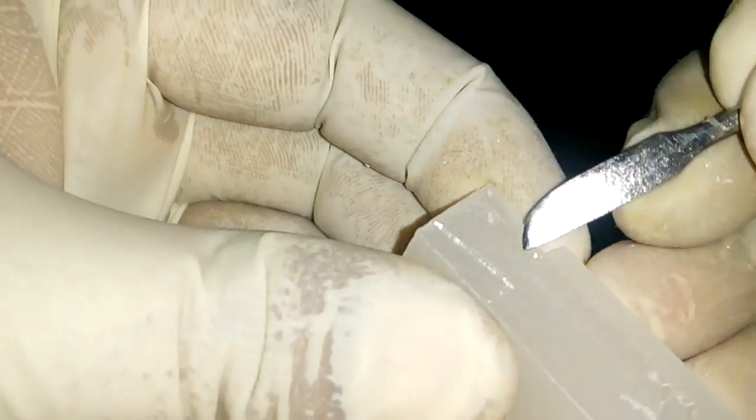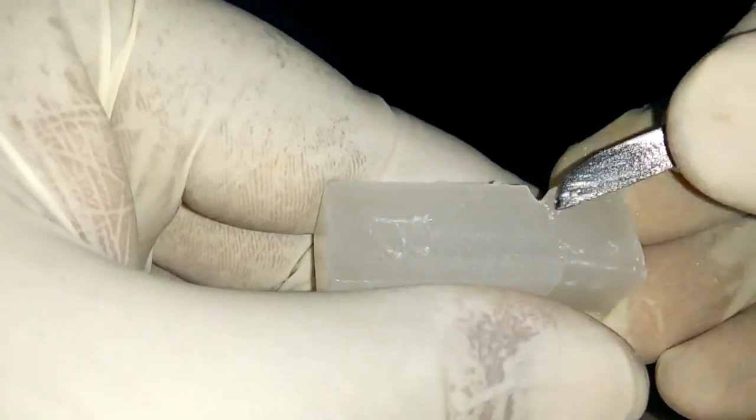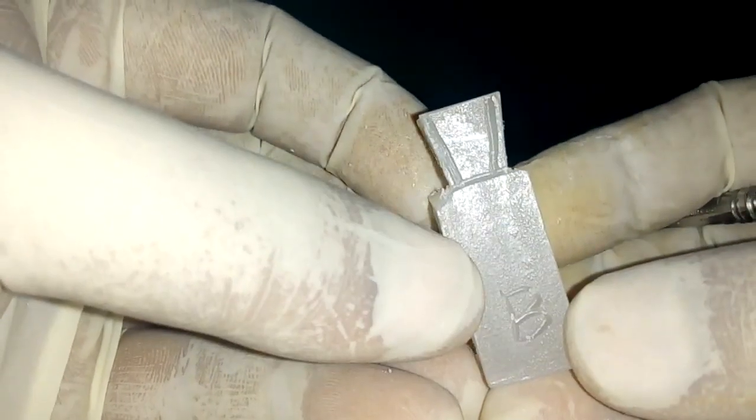On the buccal side, I am going to mark two lines and reduce the wax on the distal and mesial sides. I am going to draw a notch here — a deep depression — followed by reducing the wax until I reach the round line. See how I am reducing the wax both on the mesial and distal sides.